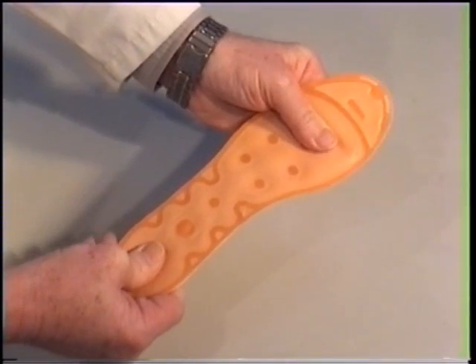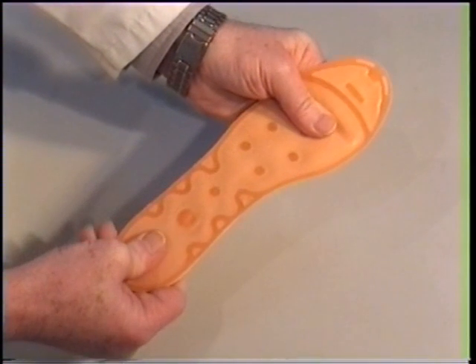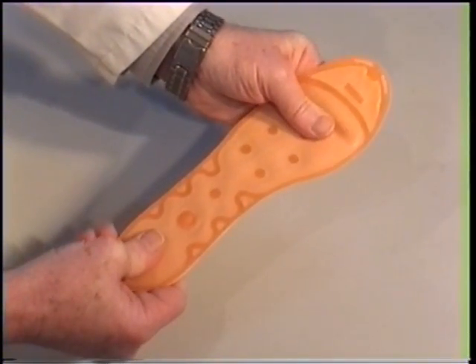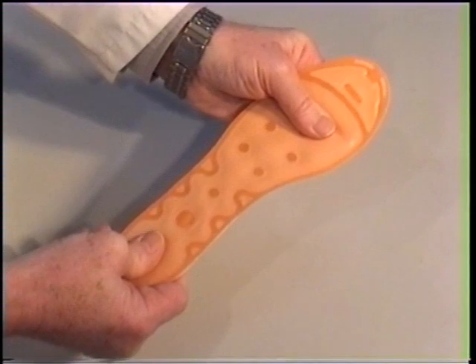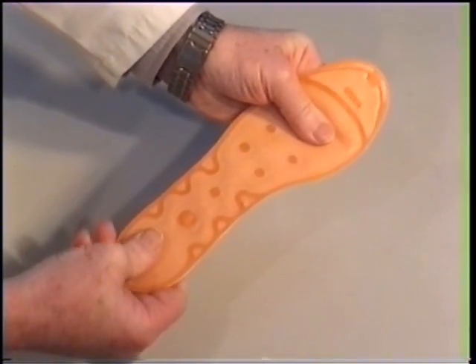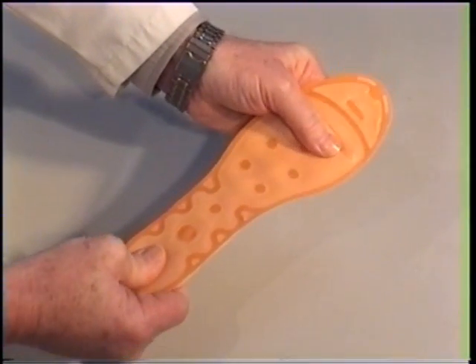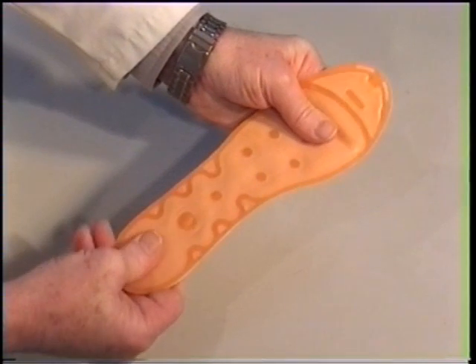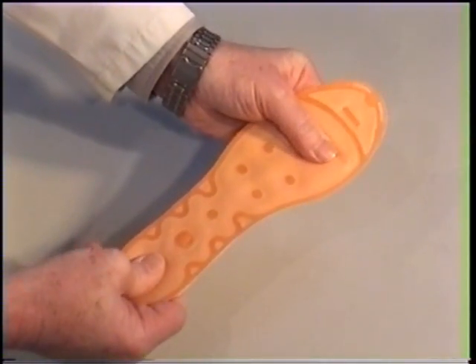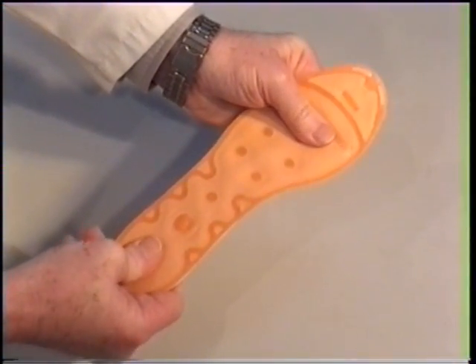The aim with the MEDICOVI insole is to increase the elasticity of the foot's lengthwise tendon through training and hopefully making the problems in the heel go away altogether. This is being achieved by using water in the soles. The lightning-fast movement of the water will be creating pressure waves, and this will cause an ongoing provocation of the foot's lengthwise tendon, forcing increased movement in the shoe. In layman's terms, we transplant the natural movement of the foot to the inside of the shoe.